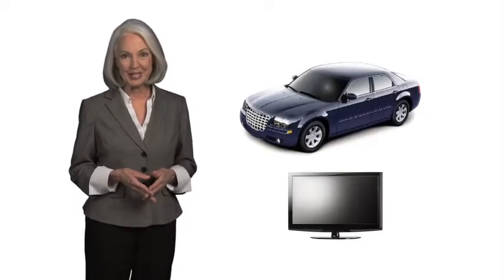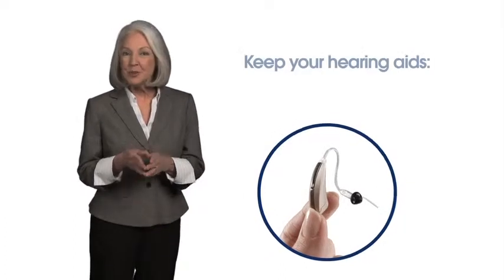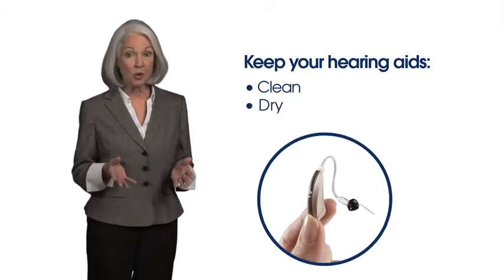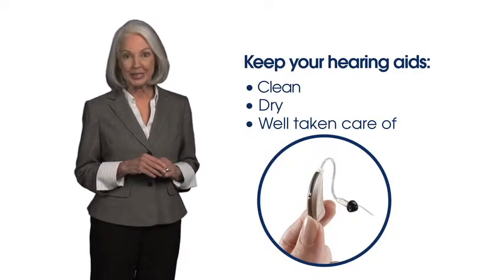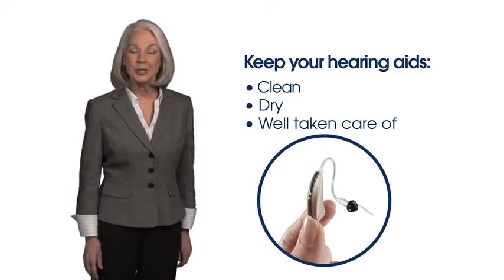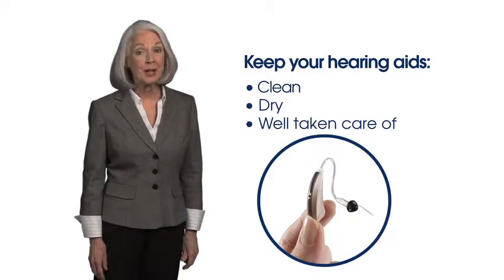The second thing to know is that hearing aids are more like cars than TVs. They need to have regular maintenance and occasional repairs to keep them at their best. Your warranty and protection plan cover unanticipated issues. But if you keep your hearing aids clean, dry, and well taken care of, and take them in for occasional tune-ups and professional cleaning, they should provide years and years of performance and comfort.